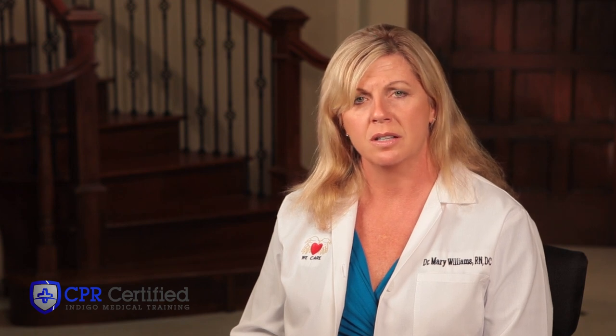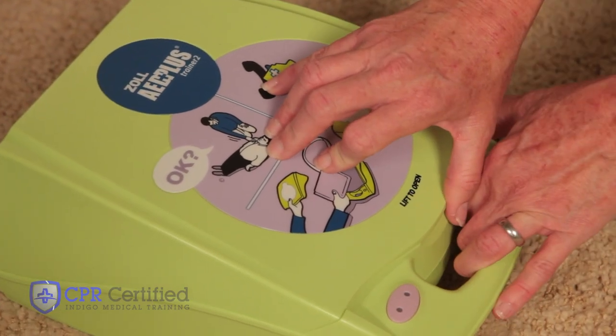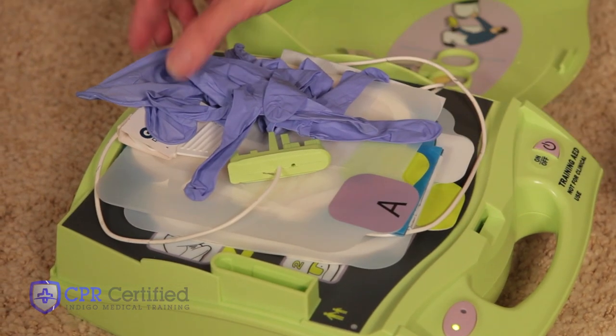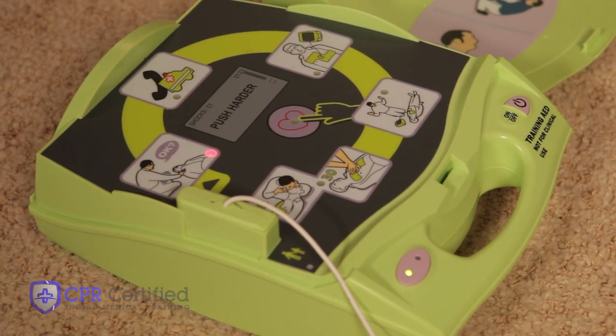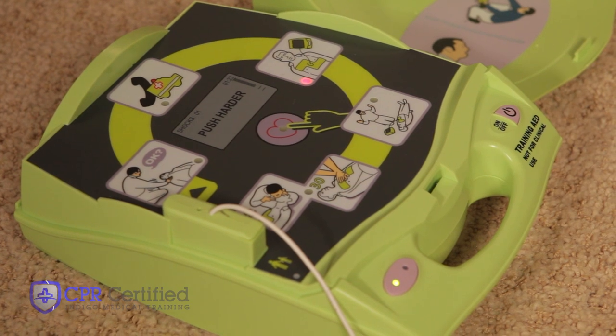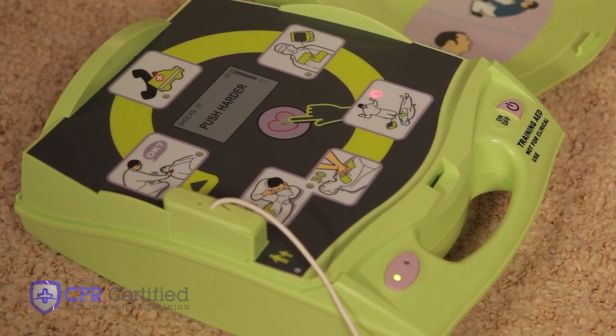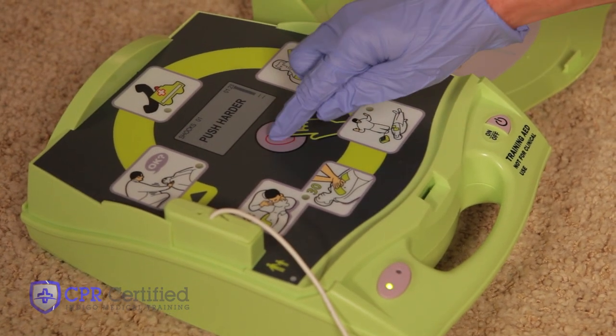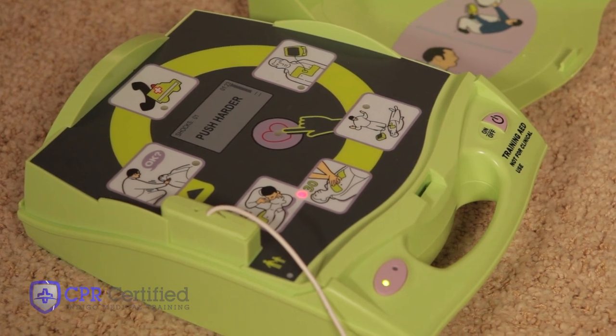Other examples show survival rates as high as 86 percent in some cases. Step 1: turn the AED on. Next, take the lid off — pads, scissors, razor, and gloves will be tucked inside the lid. The AED will then audibly prompt the rescuer: check responsiveness, call for help, attach defibrillation pads to patient's bare chest, don't touch patient, analyze, shock advised, press flashing shock button, shock delivered, start CPR. So just listen and follow directions.